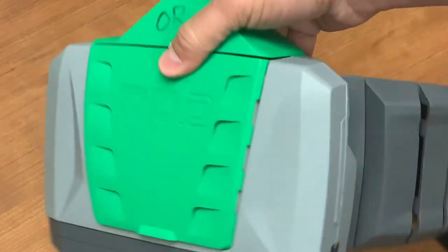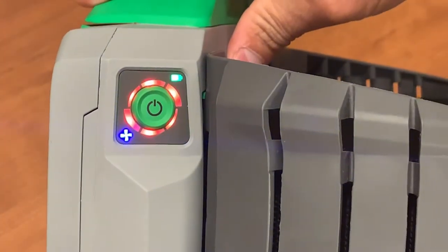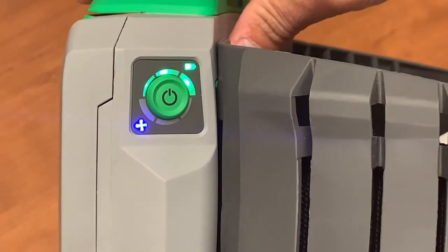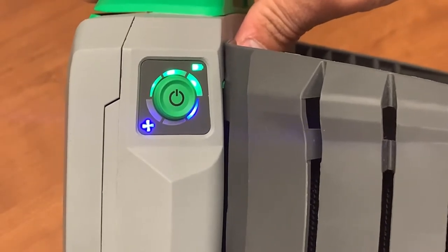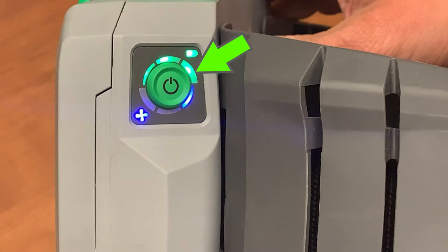The power button is located on the side of the PAPR. Pushing it will cause the unit to power on and run a short self-test where the lights will illuminate in turn. When the self-test is finished, you will see the lights on the top of the button glow green. These are the battery life indicators, and this is the third method of identifying the charge of the battery.